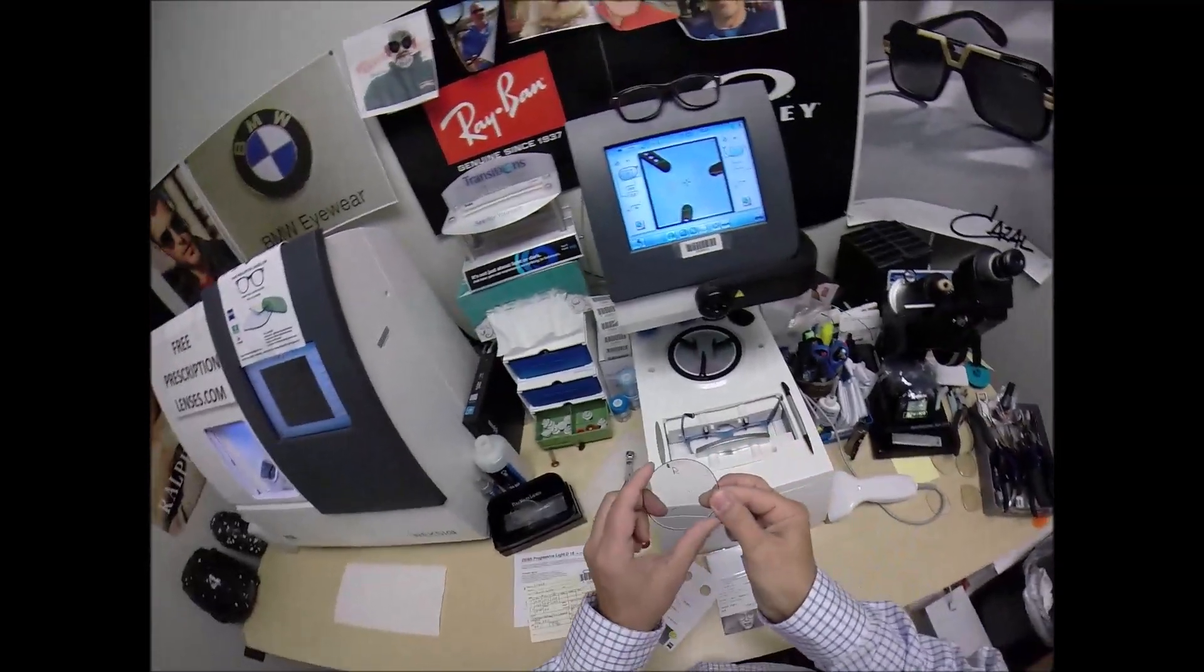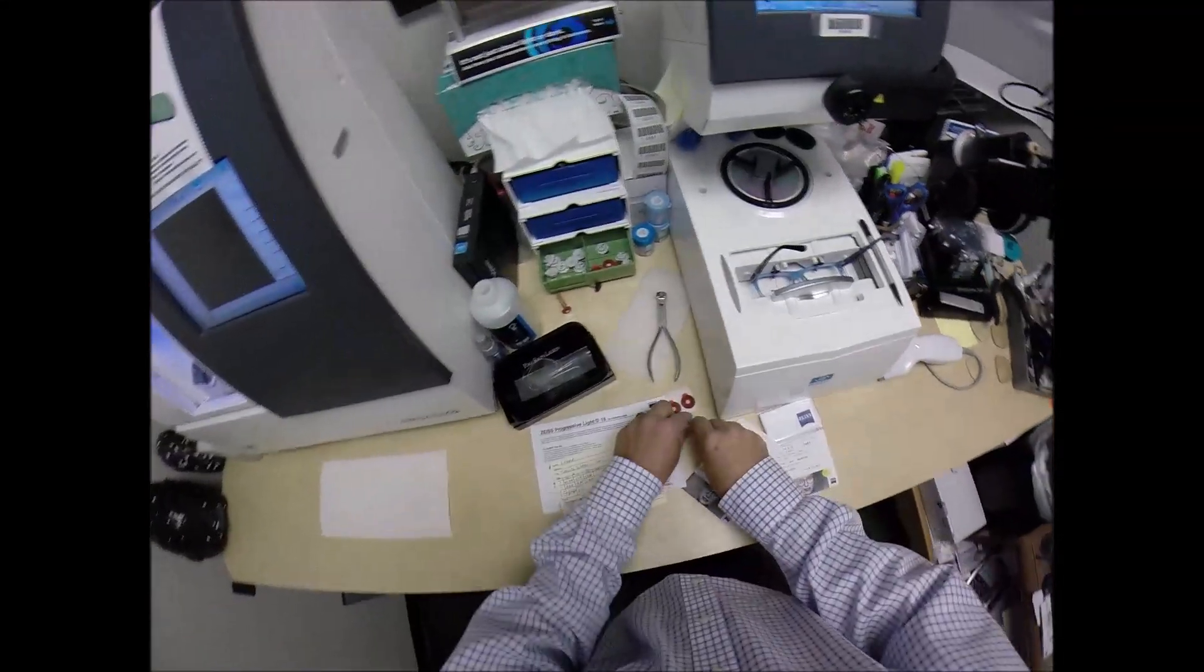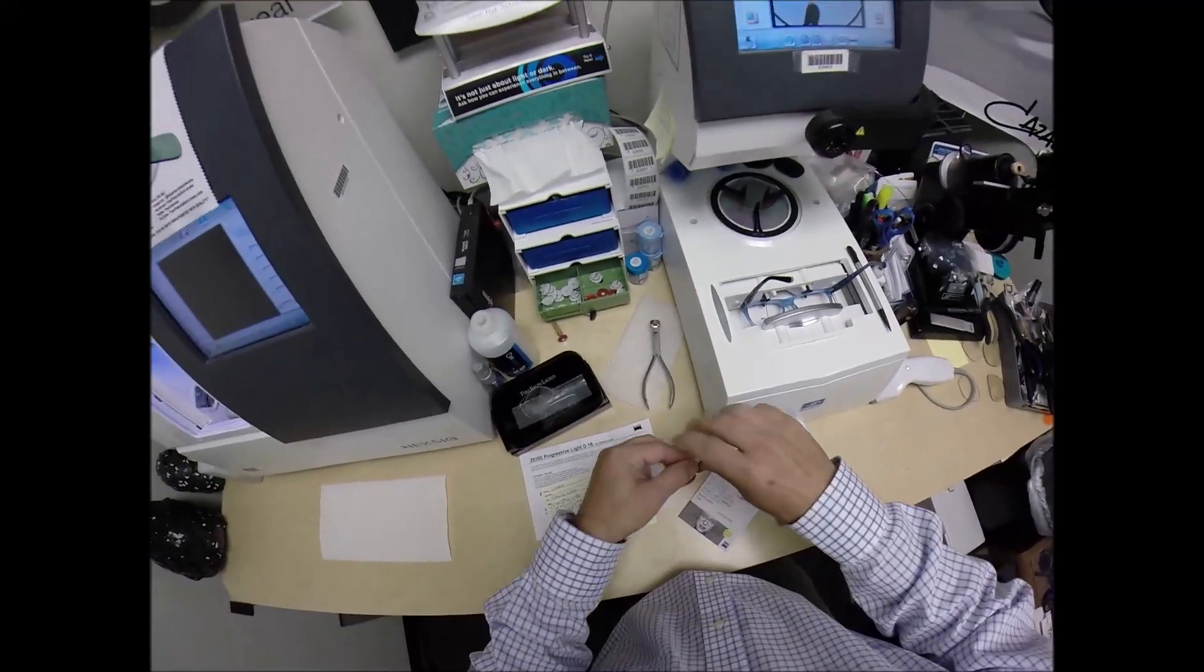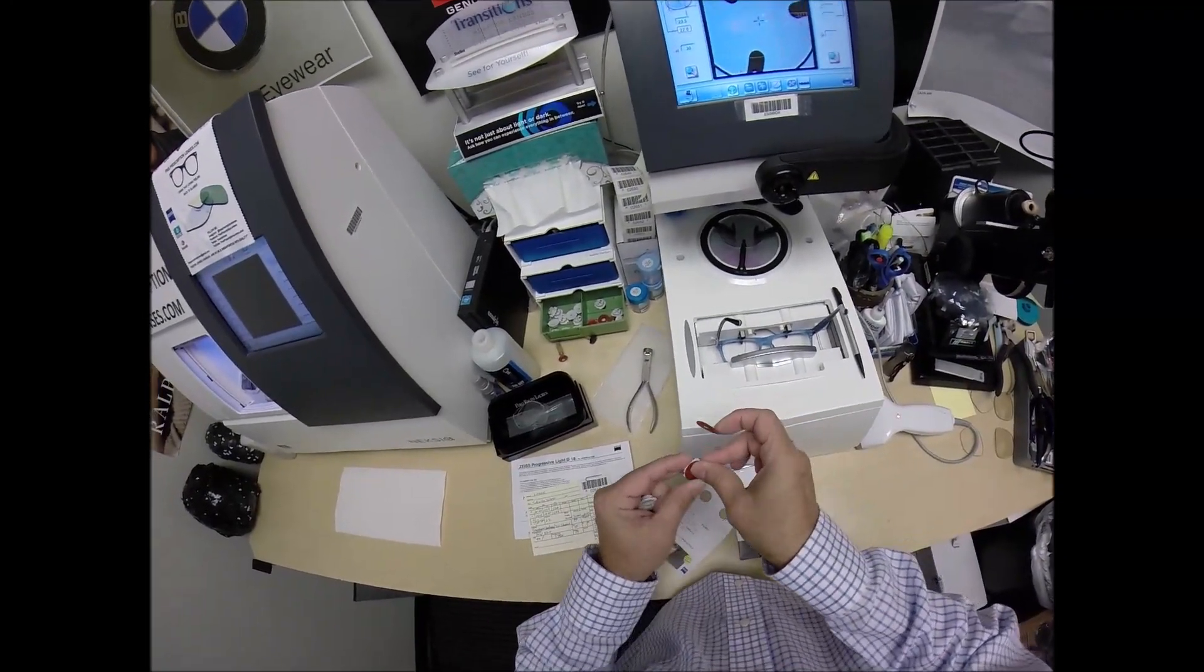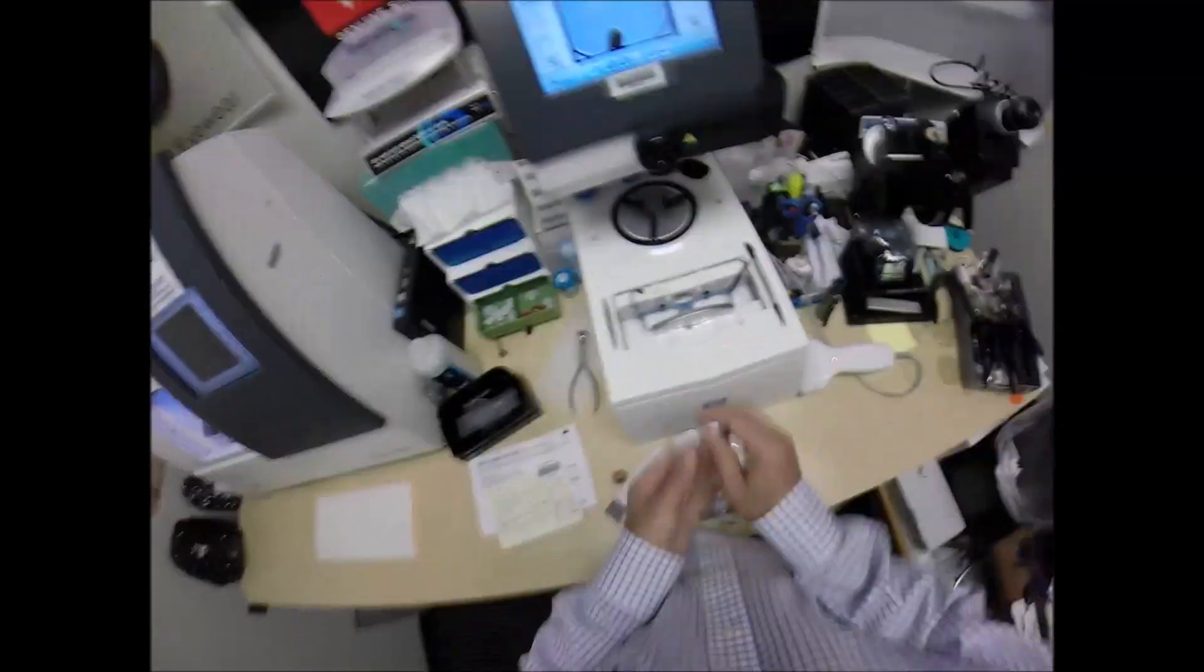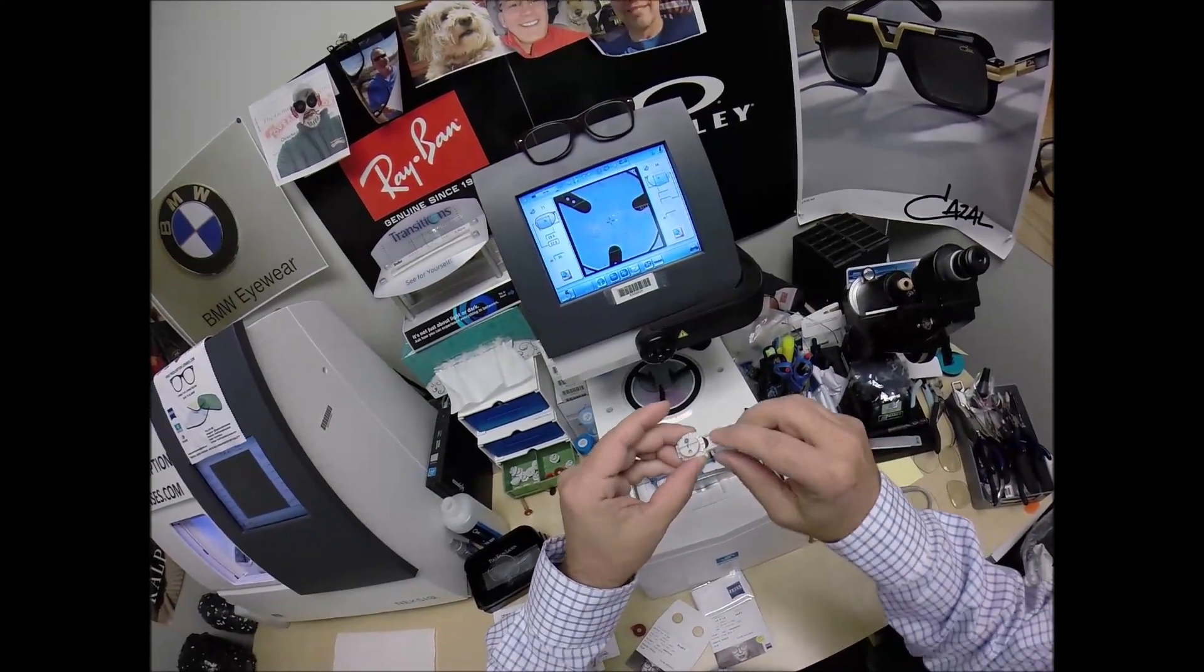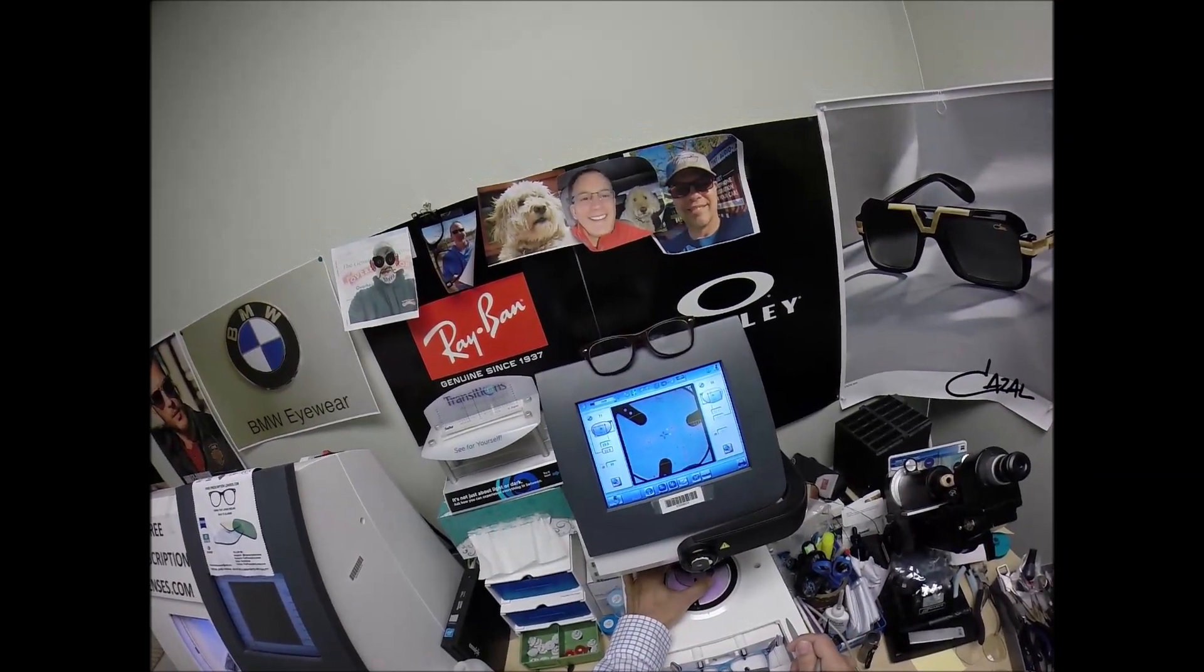This one is labeled right. I've already got them dotted up. Now this is a block, or as I like to call it Jenny from the block. I need to attach this to your lens while it is cutting so I need two double-sided adhesive stickers of which I've got them here. The black side is the sticky side. I'm going to stick that one on to the first block, do the same thing now for the second one. The silver button on the back is a magnet. I'm going to place that there, get everything lined up as such.